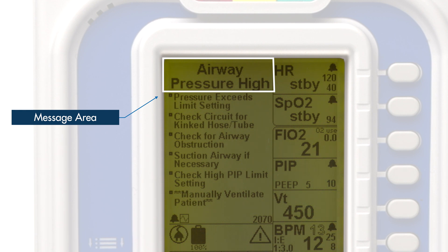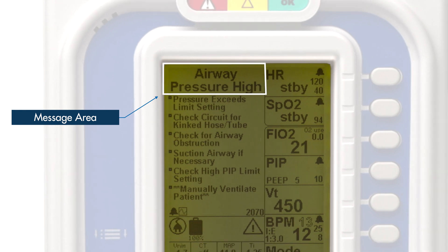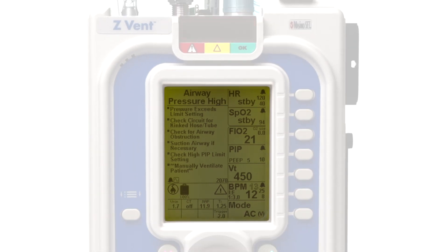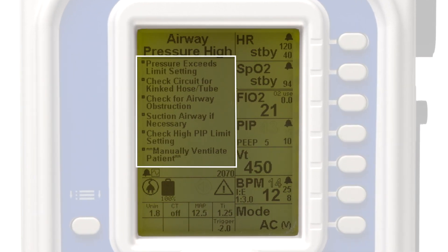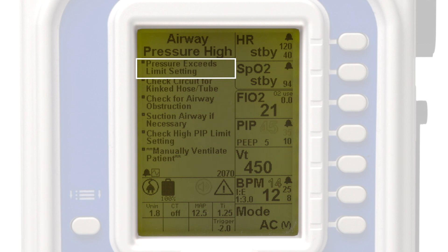The alarm name describes the type or cause of the alarm. In this case, we have an airway pressure high alarm. If multiple alarms trigger simultaneously, the device automatically prioritizes which alarm to display on-screen based on which alarm poses the highest risk to the patient. Below the alarm name are the Smart Help instructions that guide the user in resolving the alarm. The first bullet describes what specific action triggered the alarm — in this case, the pressure in the circuit exceeded the high limit setting and triggered the alarm event.